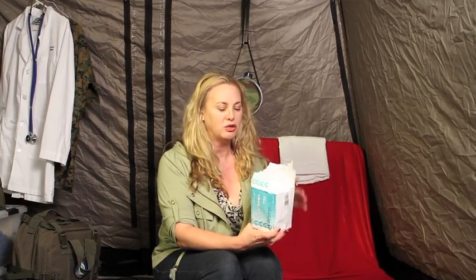What exactly are your options? First of all, let's talk about sterile and non-sterile. Your non-sterile gauze usually comes in a loosely wrapped package, which is easily torn, and it's basically just a bunch of stacked gauze. Most likely it will come in a package of 200, and these are great for stopping your bleeding and for cleaning wounds. This is what you would get your non-sterile gauze for.